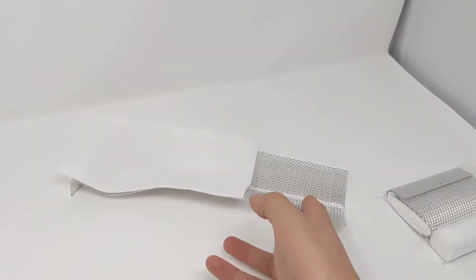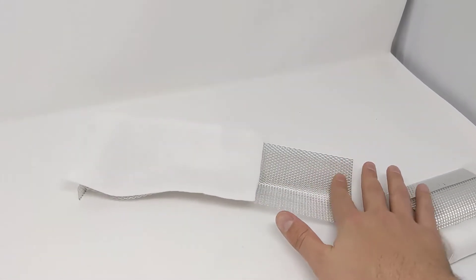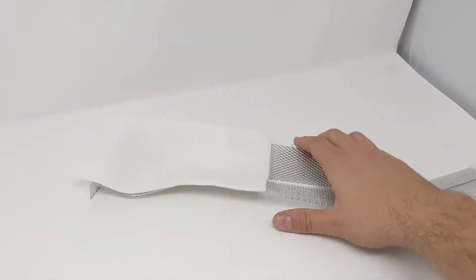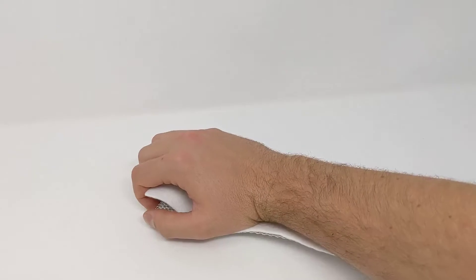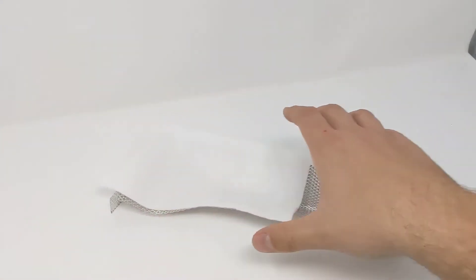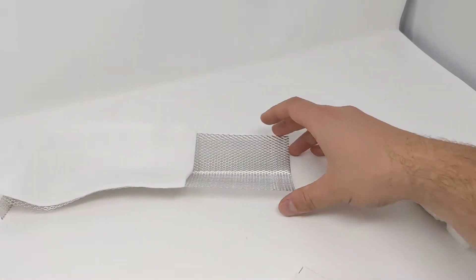This can also be cut into pieces with trauma shears to make smaller finger splints, or you can add two together if you wanted a bottom piece and a top piece, or to make an extension for a longer splint.